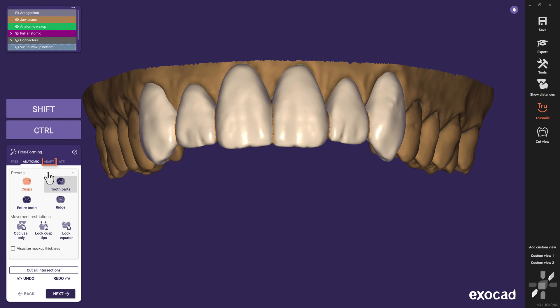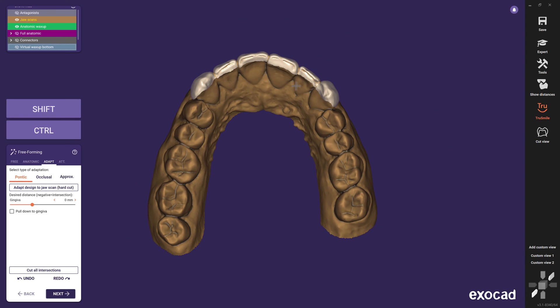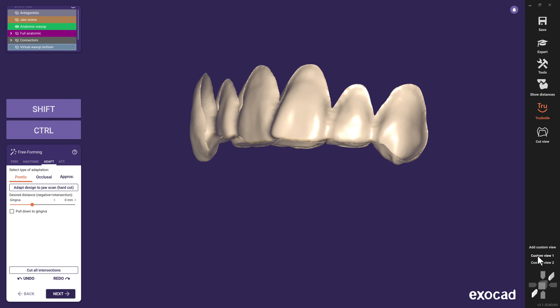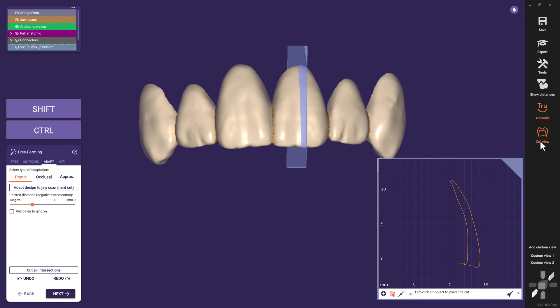This new operation will only be available with a work type mockup selected in the DentalDB. It performs a direct cut from the jaw scan to the reconstruction. The occlusal view shows how the palatinal area is affected due to the insertion direction. To check the results, you can hide the jaw scan to see the bottom of the mockup we created successfully. A look inside with a cut view reveals a watertight and single object ready to manufacture.